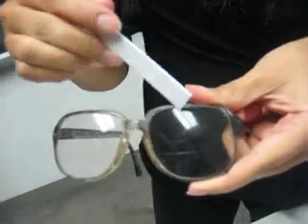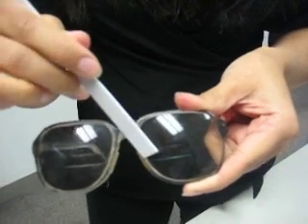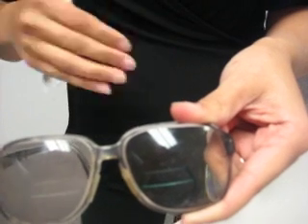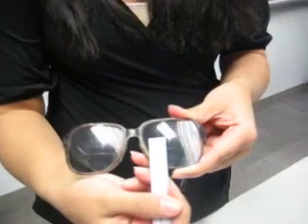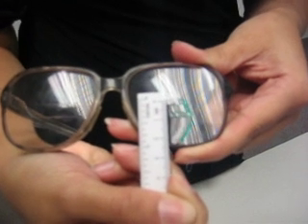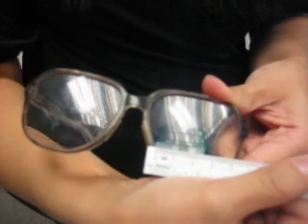So, when I'm measuring for the trifocal, there's 2 numbers. The first one will be from here to here. The second one will be the width. Now, what you need to know, first of all, is what's the standard widths that are available. If you get something that's not one of the standards, that is not the right measurement. So first we're going to measure the depth. For this it should be 7 millimeters. Pretty sure. It's not clear, but that's okay. From the top to the next line, that's going to be your first number. Then you put an X, and then you measure out the width.